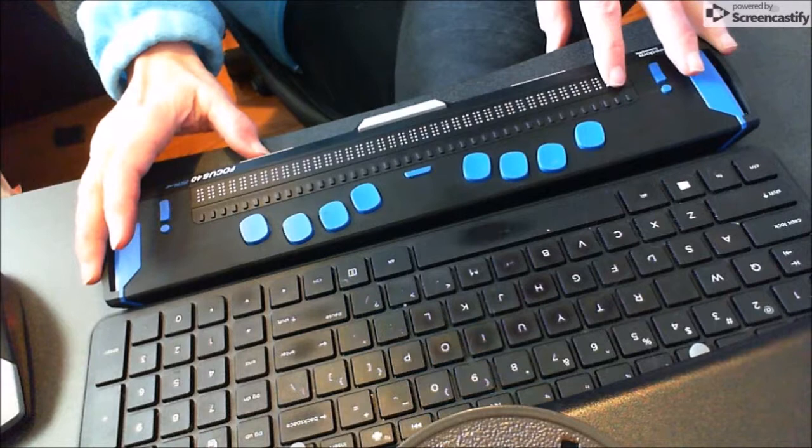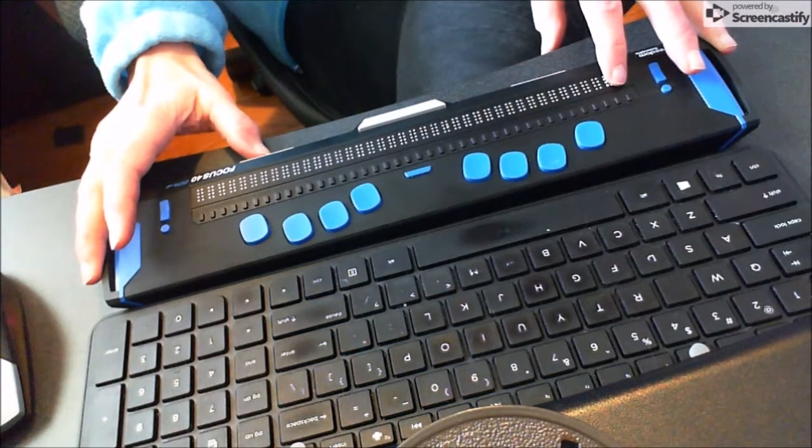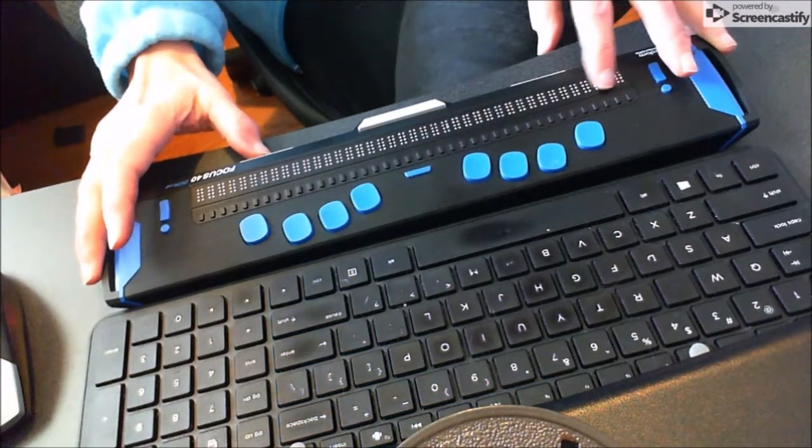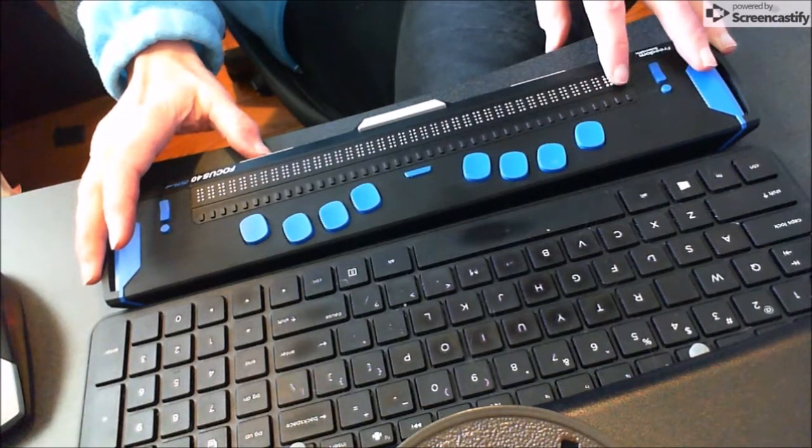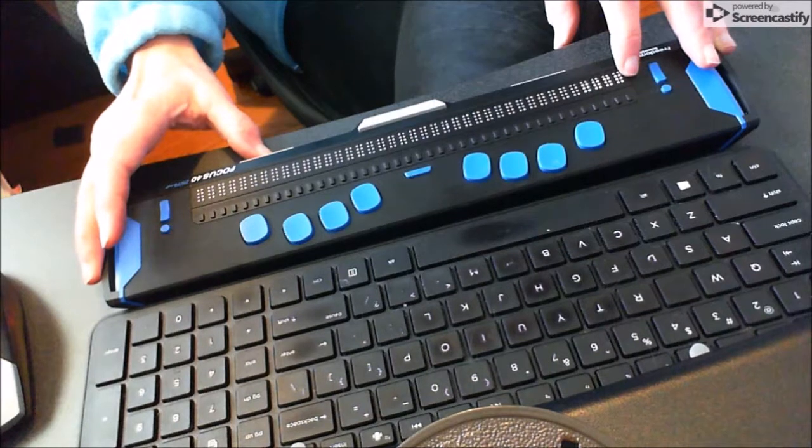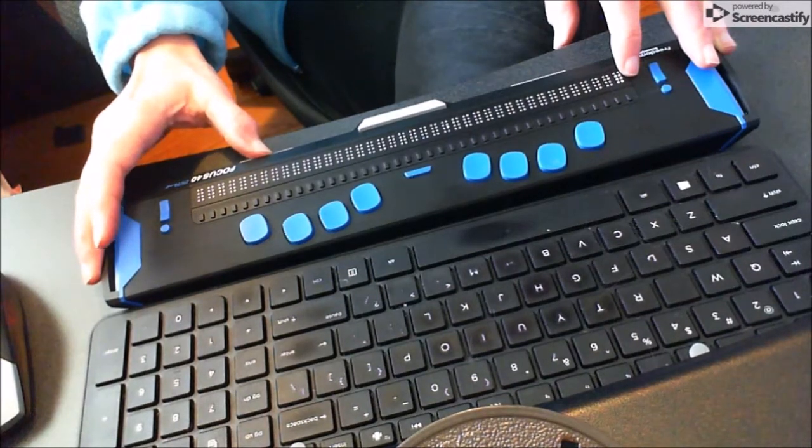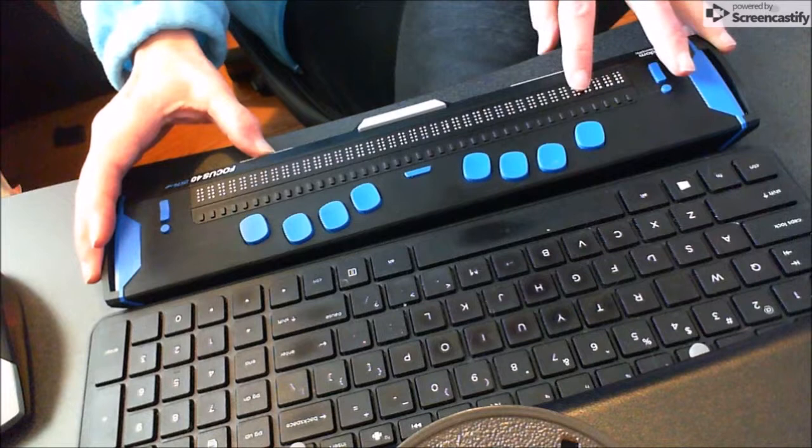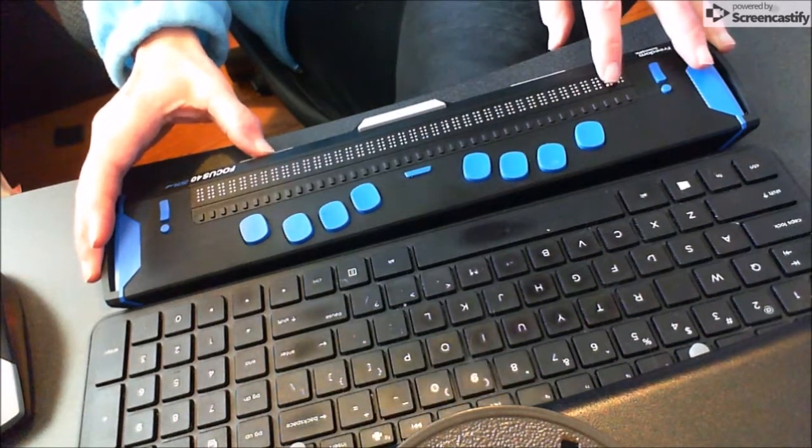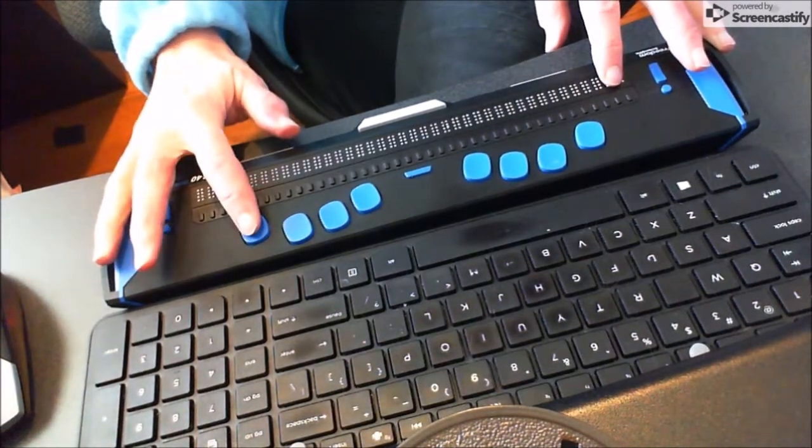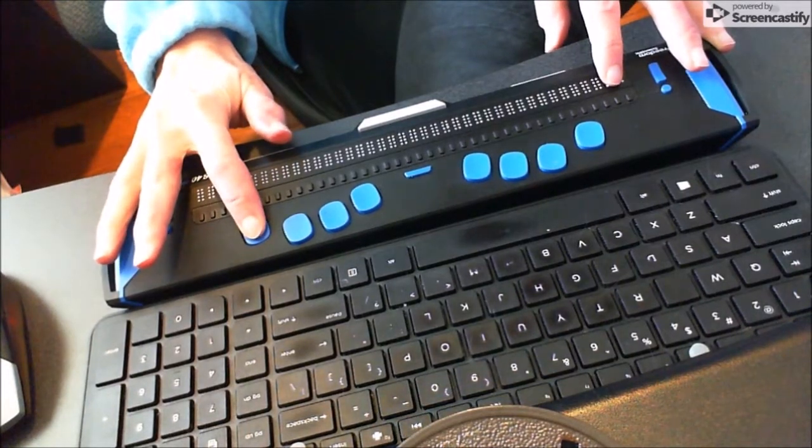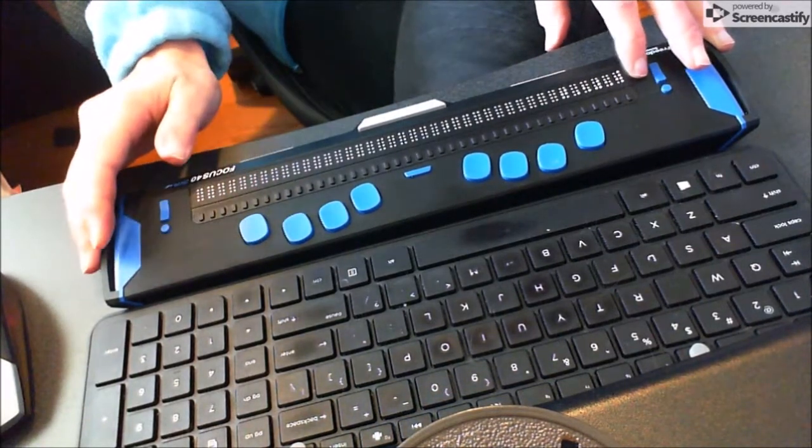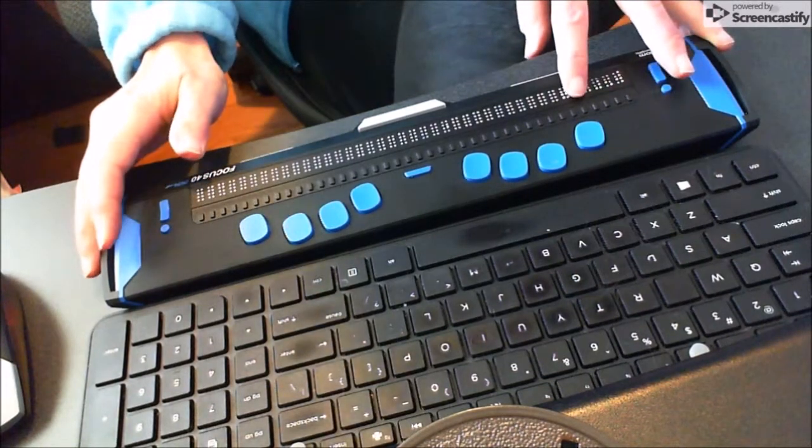This is going to be slow because I have a lot of beginners. My more advanced kids have it all the way up to four. You can use your rocker keys, just keep hitting it and you'll take it all the way through what you want. I want it on two, so I'm going to press dot 8 to confirm that. Then it goes right back to repeat after I finish the dot 8.